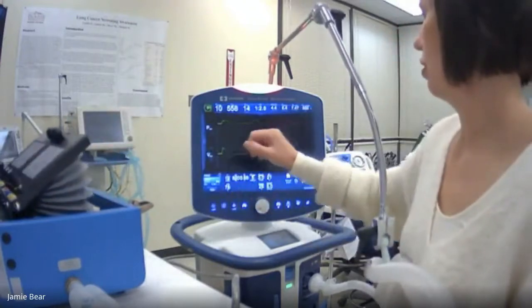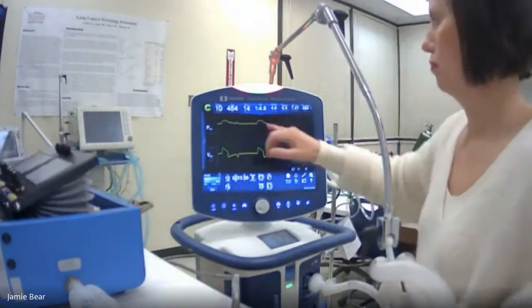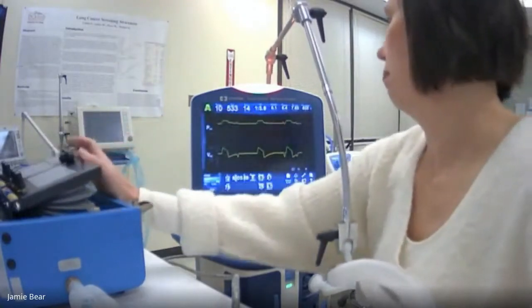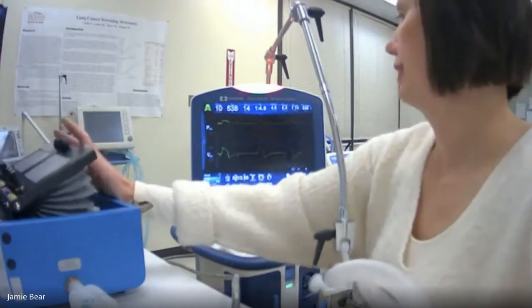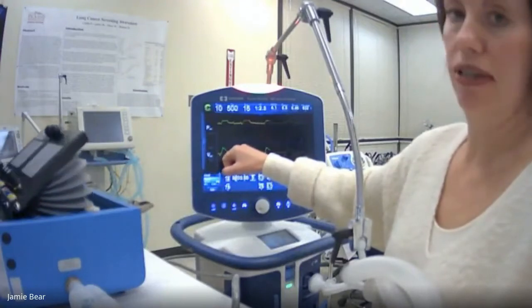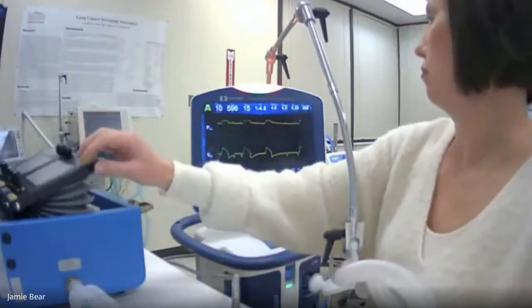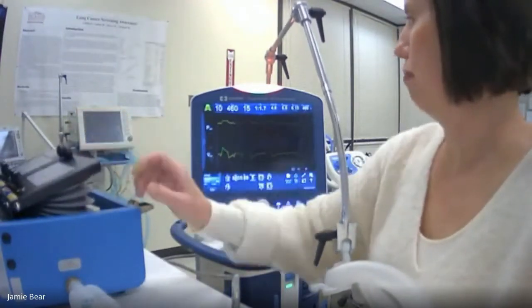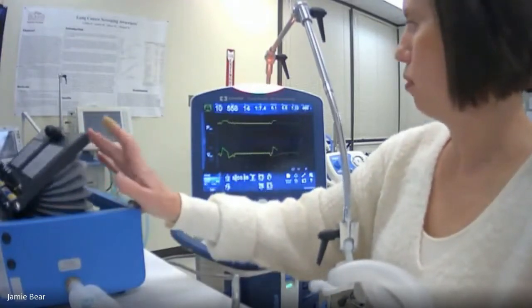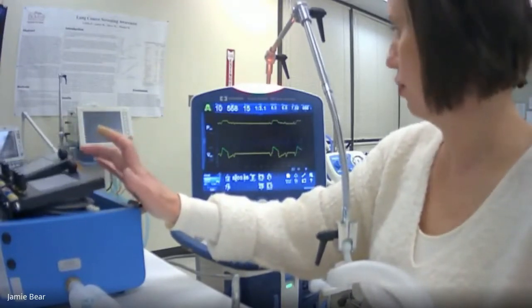And we can watch our tidal volume here. That's the mandatory one. We can look right here actually to see what our pressure supported breaths are. And you can see that was a spontaneous. We could see that negative dip below the breath itself. Once again, such compliant lungs, the tidal volume is still very appropriate on those assisted breaths, pressure-supported breaths.